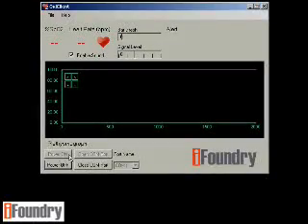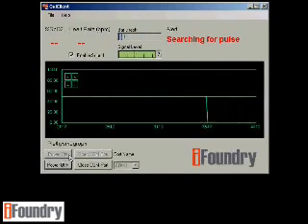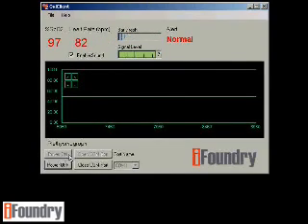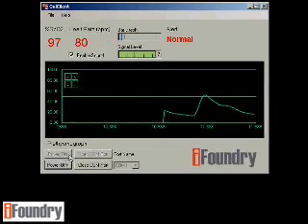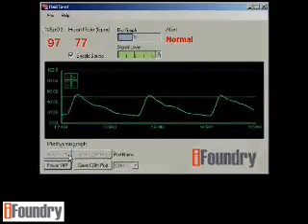Click on power on to turn on the Oximeter, and also insert your finger into the finger sensor of the Pulse Oximeter. The OxyClient is now receiving data from the IFC's 5651 board via SPP over Bluetooth. It will take a while for the plethysmograph data to be transferred from the Pulse Oximeter to the board and subsequently to the OxyClient application. Here we see that the Pulse Oximeter is connected to the board and the data is transmitted over Bluetooth to the OxyClient.